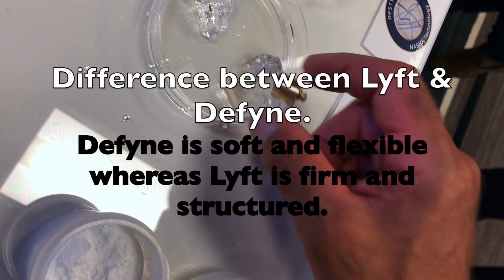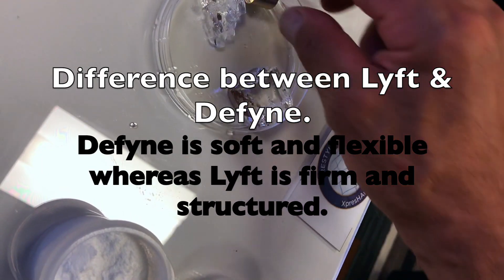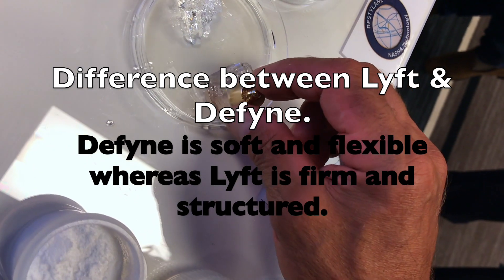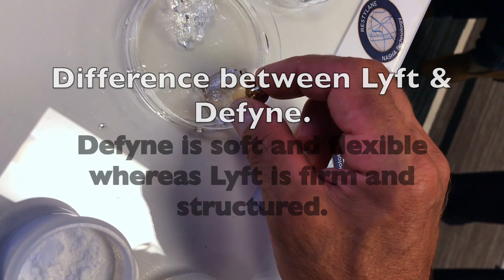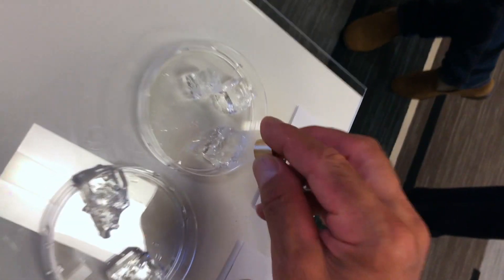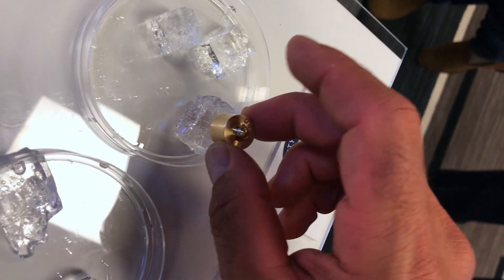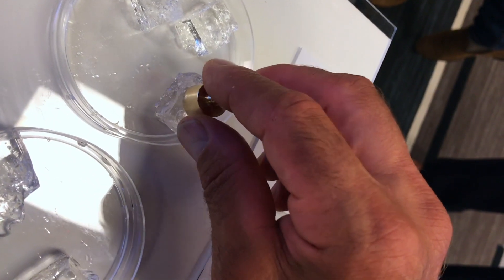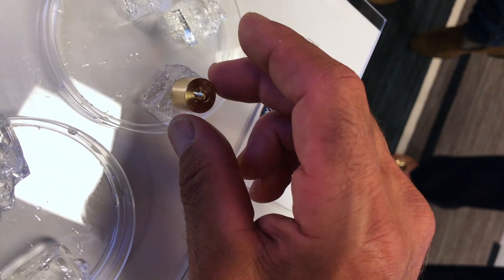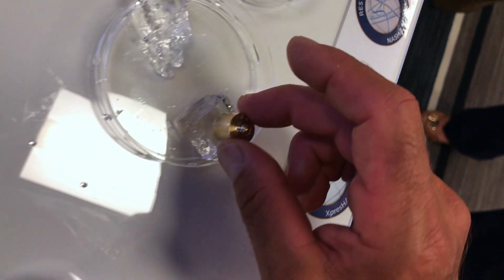The weight is now being placed on Restylane Lift. This is a very firm product — it's great for lifting cheeks. This is also Lift over here, but if you put it on Define, which is the product in the background, it will not resist the weight.